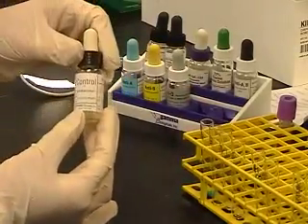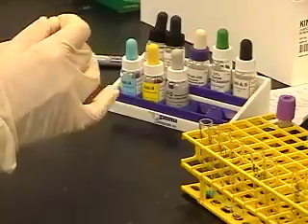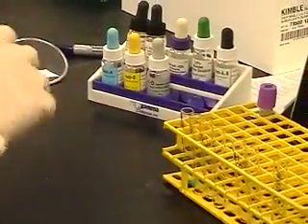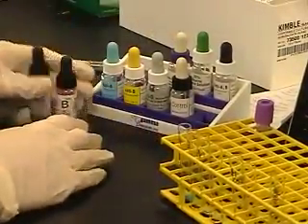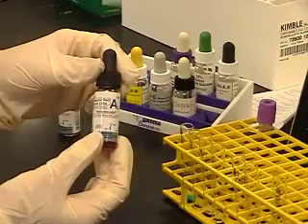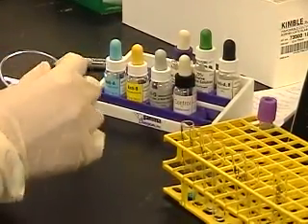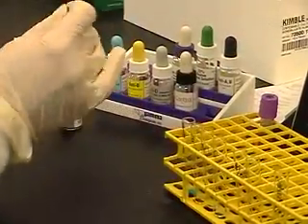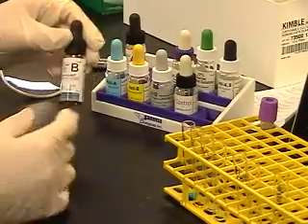These are manufactured reagents containing antibodies that will detect the presence of antigens on the patient's red blood cells. For the reverse type, we are looking for antibodies in the plasma, so we need to use red cells that have known antigens on their surface. So we use 1 drop of A1 cells, 1 drop of B cells.